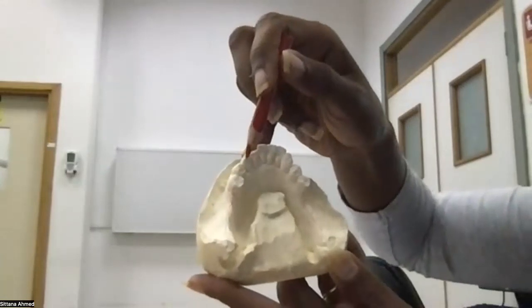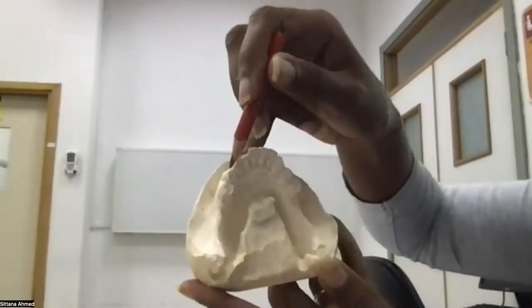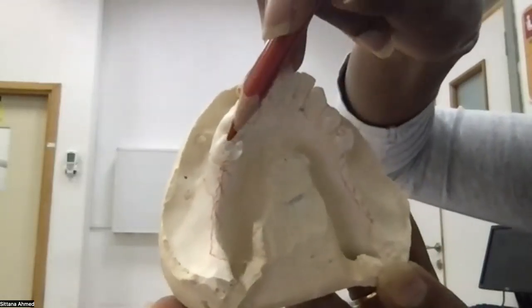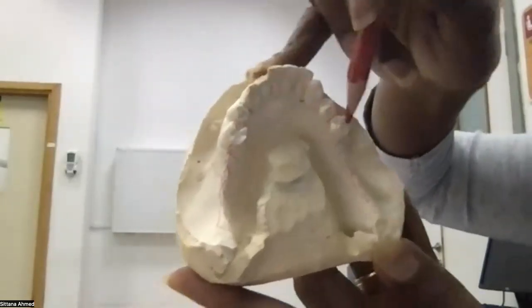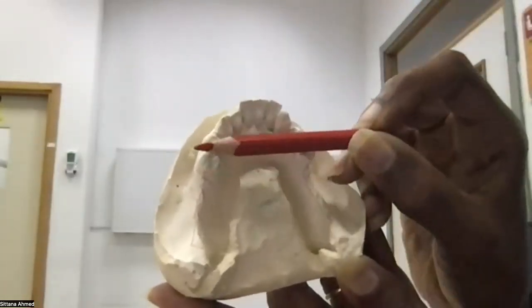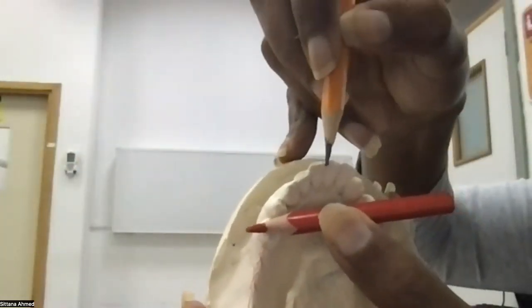So in this case, I need first to draw my fulcrum in order to locate the position of the indirect retainer. Where do you put the fulcrum? I already told you there is a rest here and a rest here. So you need to find the distal rest. There are no other rests. These are the only rests, and these are the most distal rests. So I make an imaginary line across this fulcrum line, and from there, I determine where is the furthest tooth perpendicular to it.